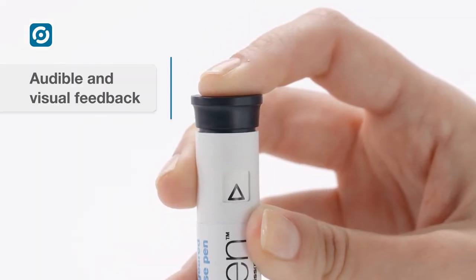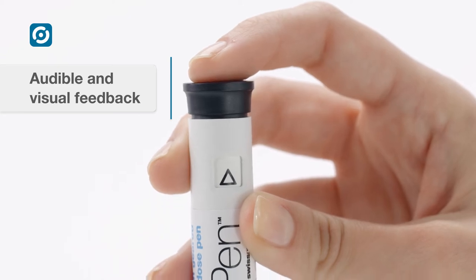Audible clicks confirm when the full dose is loaded and at the end of the injection.